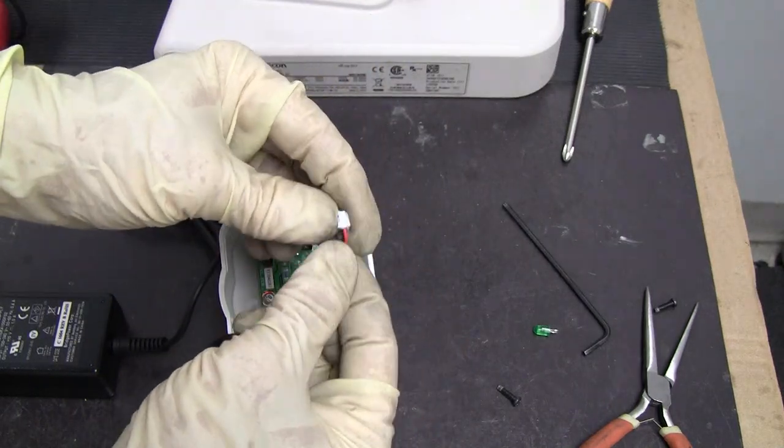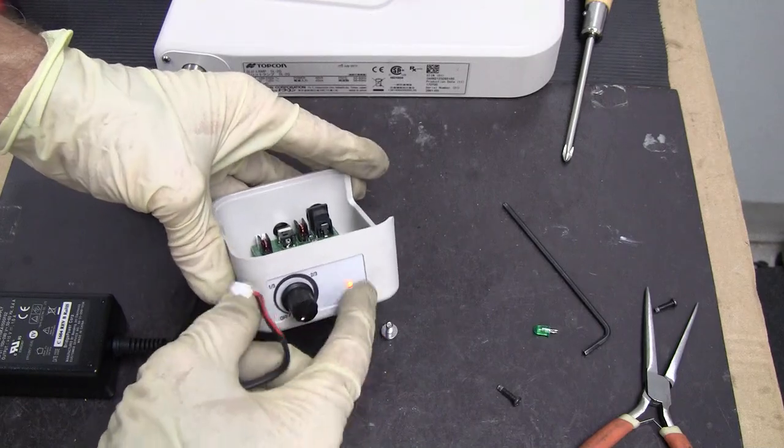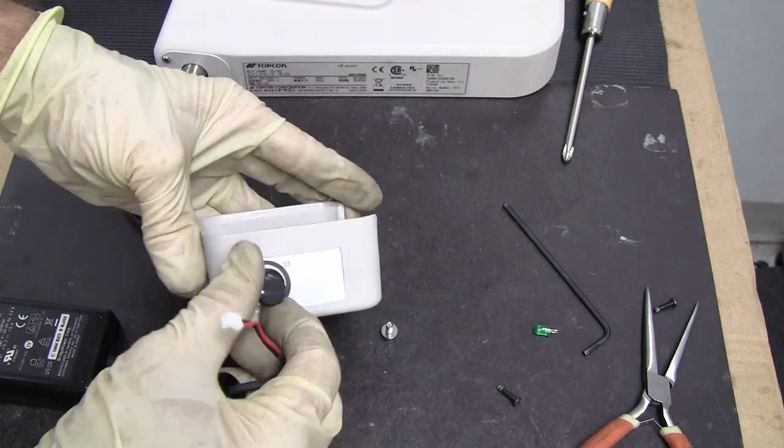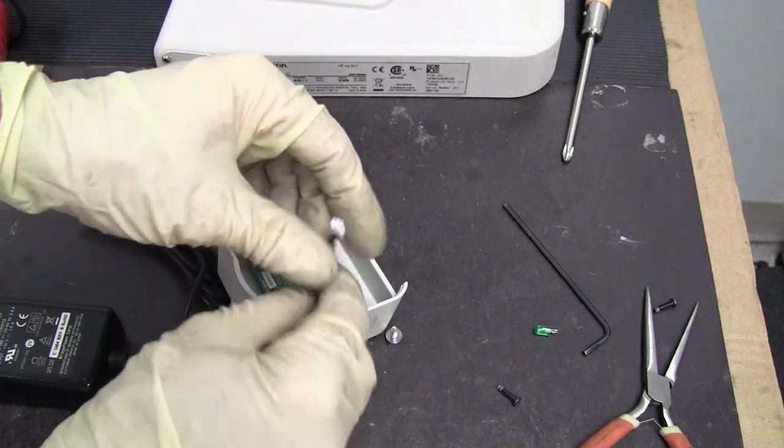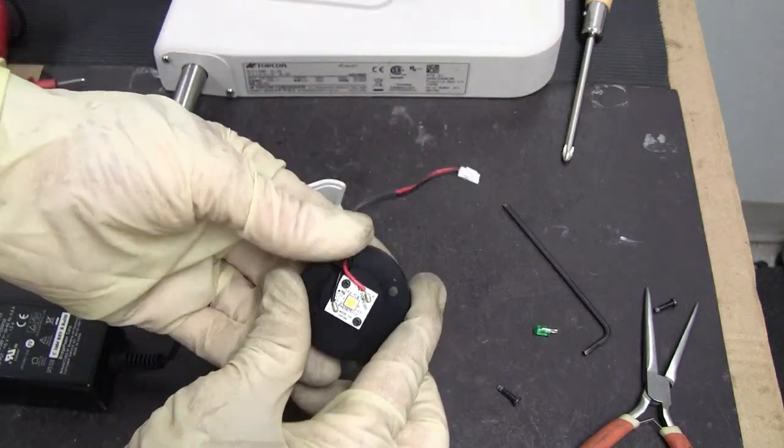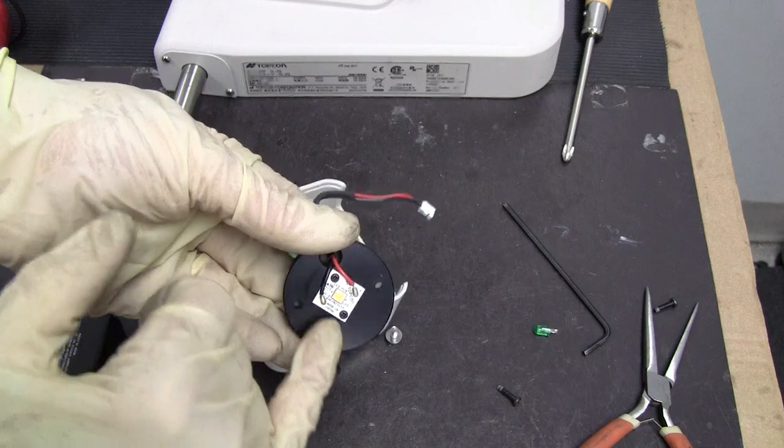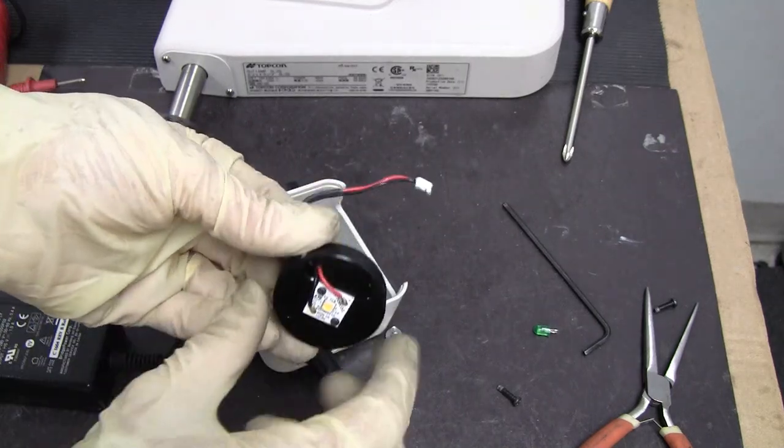If this were plugged in and the indicator were green but you still weren't getting any light, it's very possible that this LED is burned out.